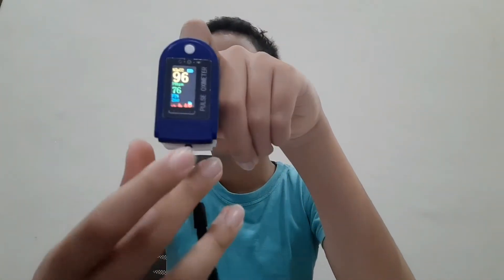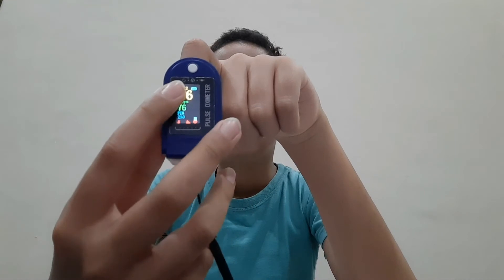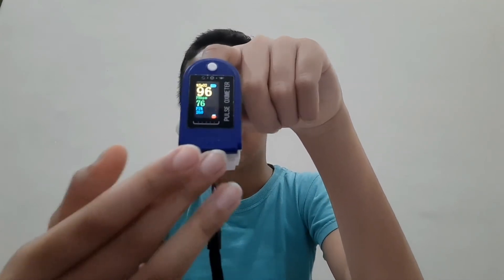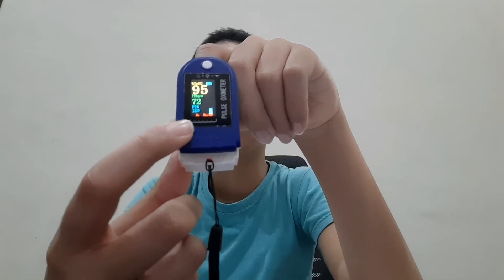Next, we need to know how to read it. The one with the heart or the heartbeat is a beat meter or heartbeat meter. The yellow one is the oxygen meter. The green one is the exact same with the red one, just in numbers. The blue one is about pulsatile blood flow to non-pulsatile blood flow.